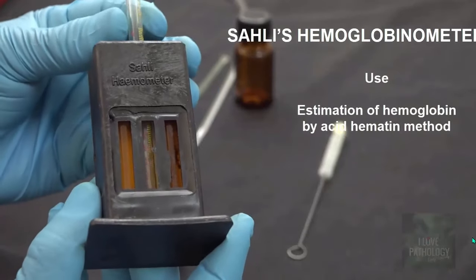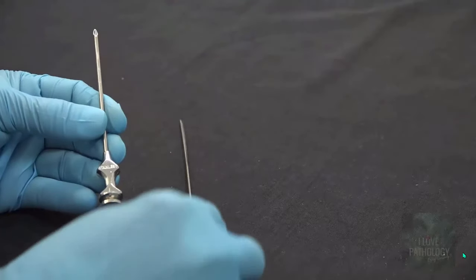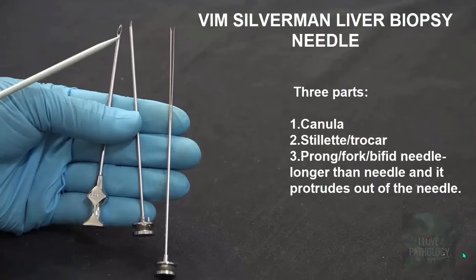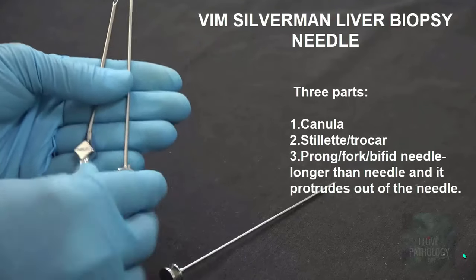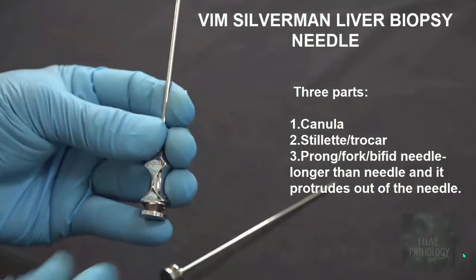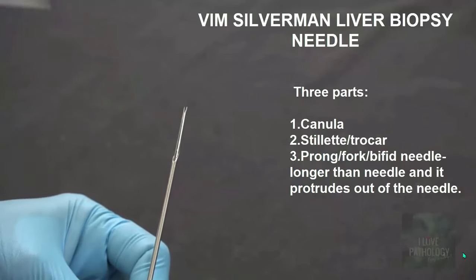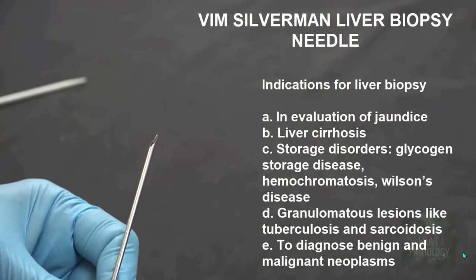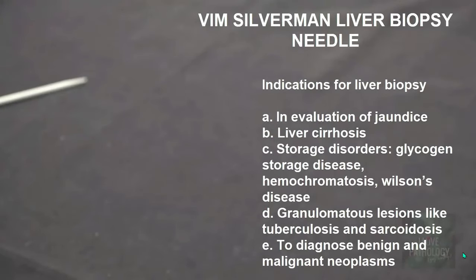This is Vim-Silverman liver biopsy needle. It has three parts: the stylet or trocar, the cannula with a beveled edge, and the bifid needle. The bifid needle is longer than the cannula and has a sharp cutting edge with longitudinal grooves for cutting the tissue. Because this needle is longer than the cannula, it retains the tissue when the needle and cannula are withdrawn. Indications for liver biopsy: evaluation of jaundice, cirrhosis, storage disorders, and diagnosis of various tumors of the liver.